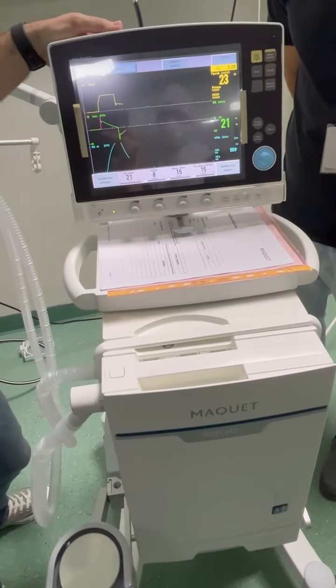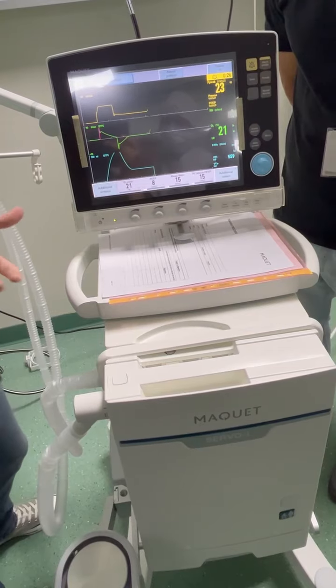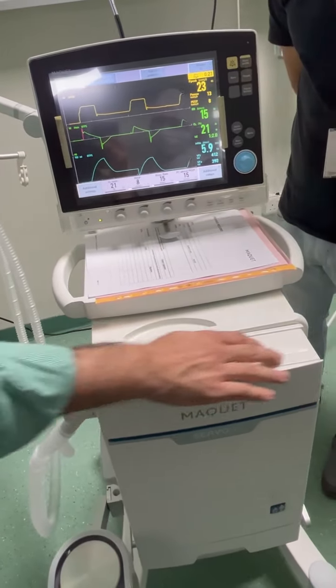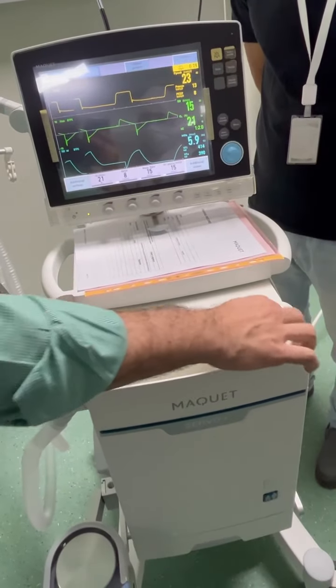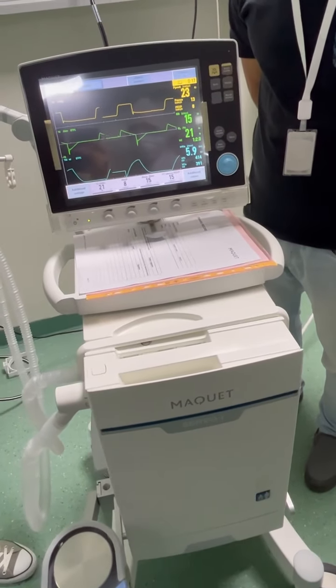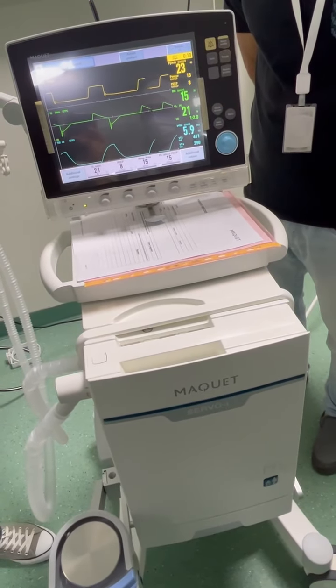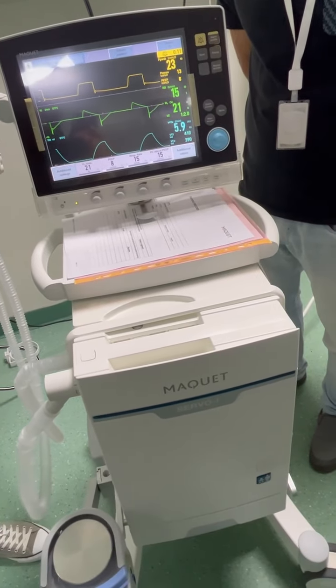Operate around 10 to 15 minutes. What will happen now? The air will come through the expiratory cassette and go out, so it will dry the expiratory cassette from inside. After 10 to 15 minutes, you do the pre-use check. If the pre-use check passes, you can connect the patient to it.